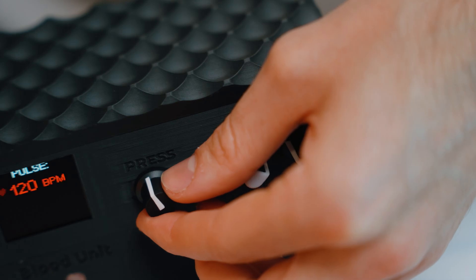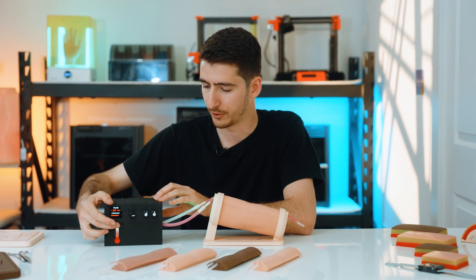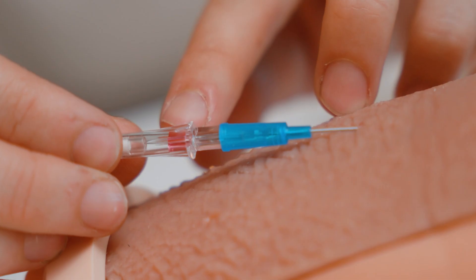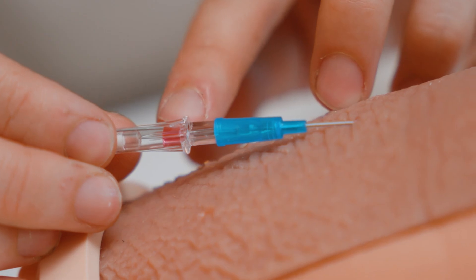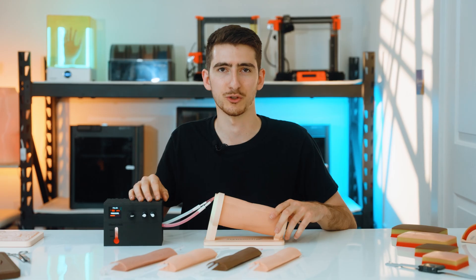It is really easy to see on the screen the settings that you put as well as the level of blood you have inside of the unit. All of our products are really easy to take care of — just use some water and soap. Remember that you can get this as a whole kit or each product individually at Proximity.net or in our Amazon store.